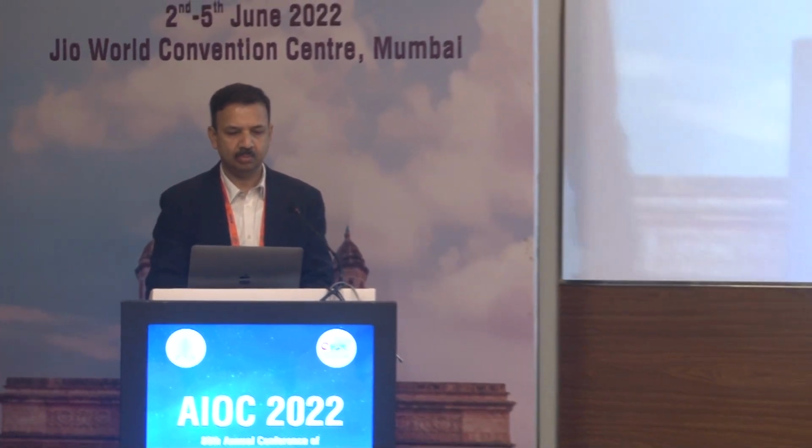So I think that's a very good option, and we have some limited experience in fine ERMs of doing EDOF, and they seem to be working quite well. So we should be able to do more and more in these borderline cases where you feel that maybe a trifocal is out of the question. So I think this is likely to be in the future.